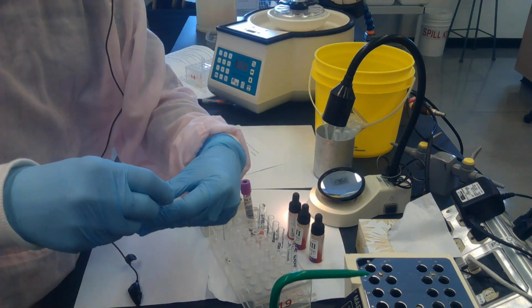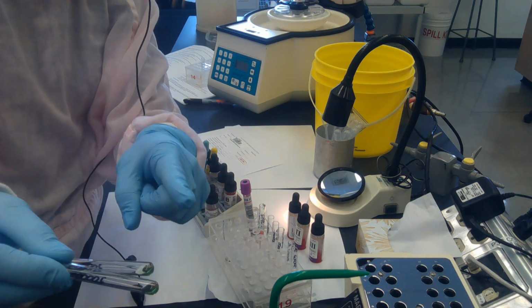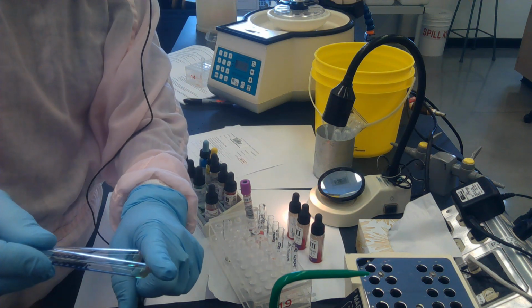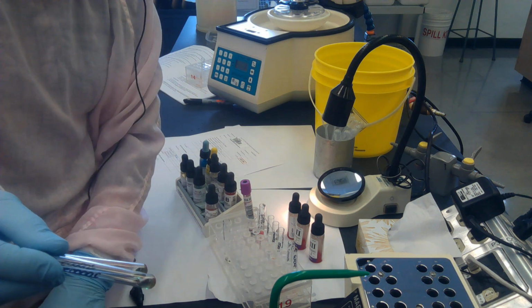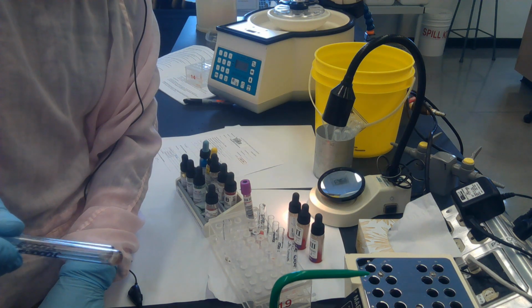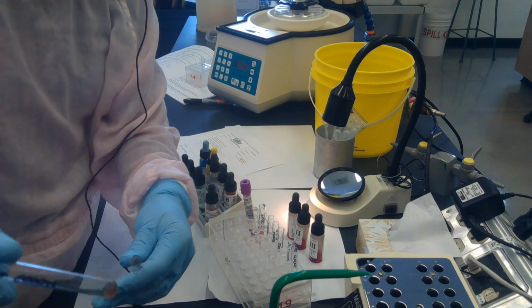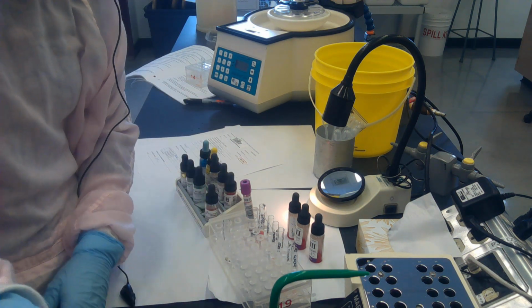I'm going to waggle my other two tubes at the same time. So I place the button up, and I begin the waggling process. What I'm doing is just having the liquid run across the button in an attempt to help it get off the bottom of the tube. So the liquid is scraping the cells off the tube. Neither of these were hemolyzed when I first picked them up. So I've got the button off the bottom of the tube.